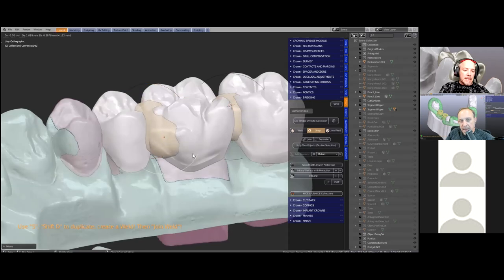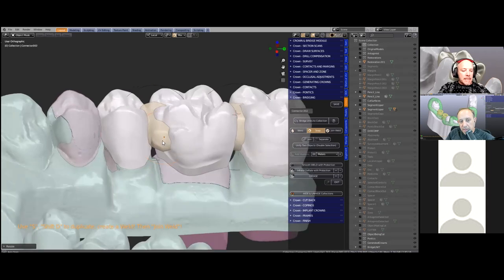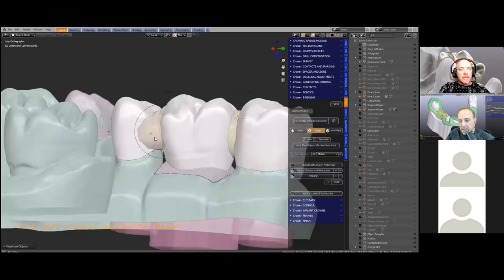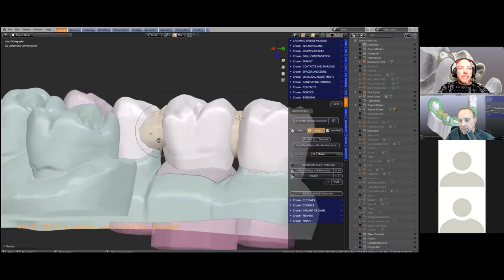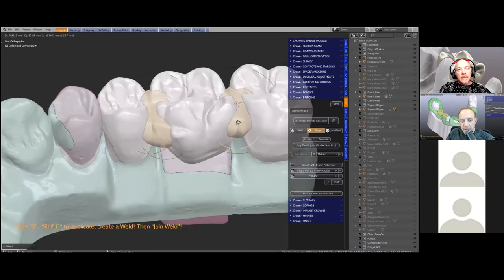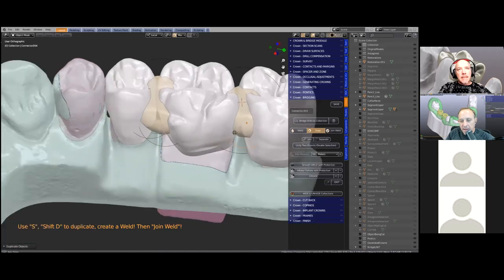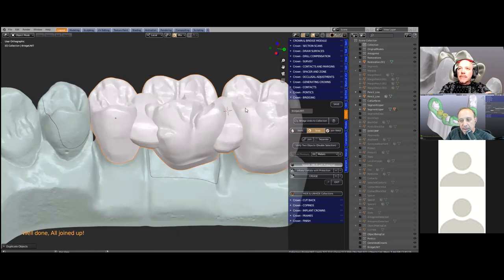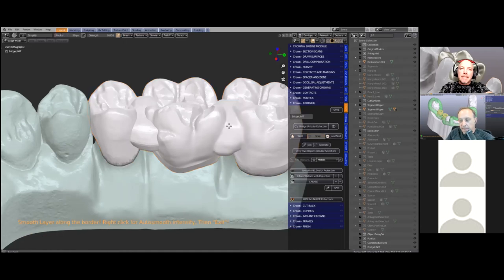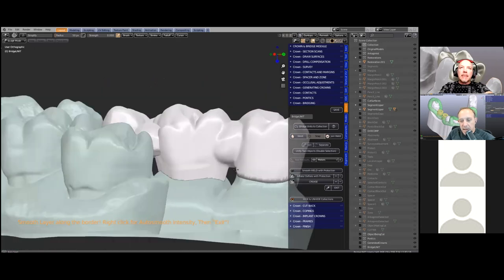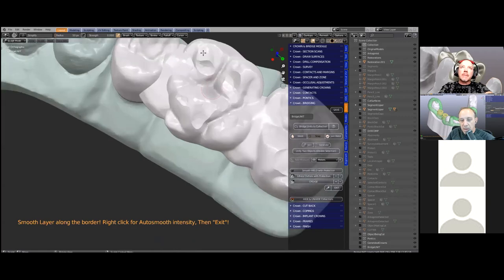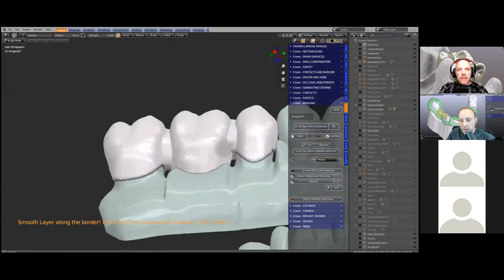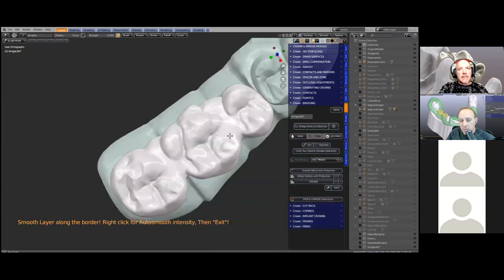Michael's toggling in and out of the magnet tool, which is on the top toolbar. The magnet tool will cause the bubble to stick to any surfaces; by deactivating it you can freely move the sphere wherever you like. He's just strengthening the support, giving it more support, and then by pressing the 'join weld' button it merges all of that together. Next we're going to smooth this junction. The gray areas around the margin we call a protection zone — no matter what you do to these crowns now, the inner fitting surface and the margin are completely protected and won't distort.